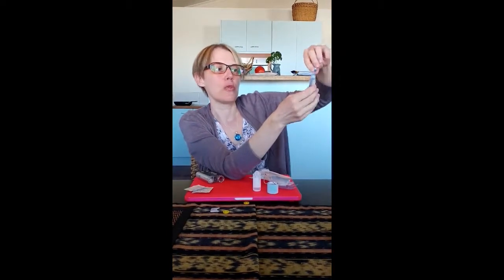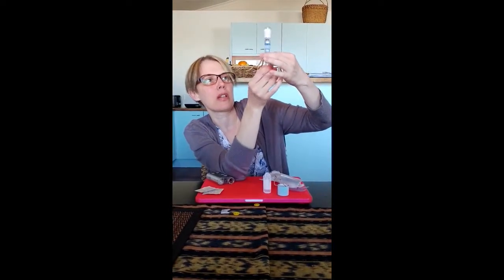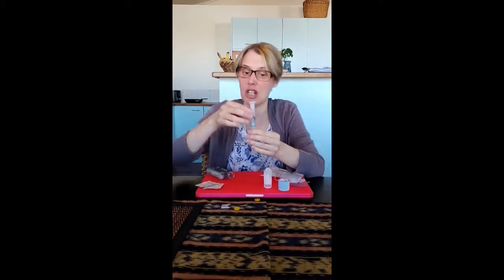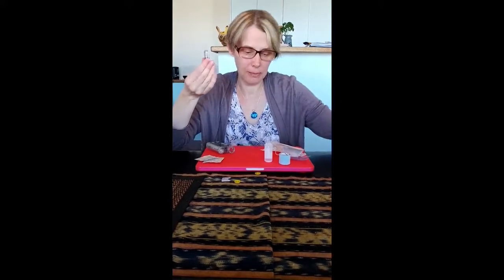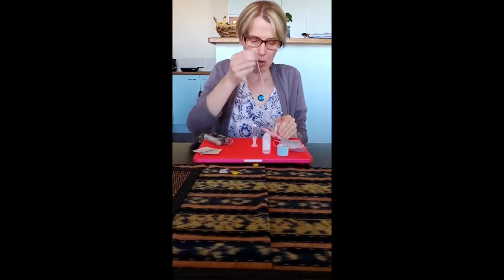You can see it's still nicely sitting on the two ml line — I haven't lost any water, which sometimes happens with syringes because the water spurts out of the top. I make sure there are no bubbles — just give it a flick — and I can't see any. Then I turn it upside down, as the literature suggests, and pull off the cap, then discard that completely. Now I'm ready to fix it to the tubing.